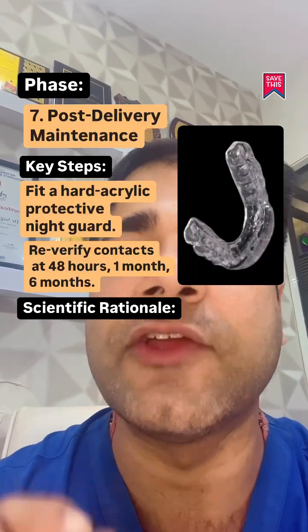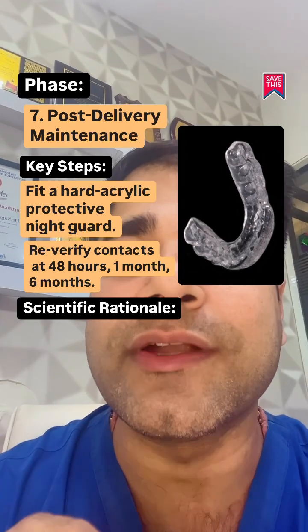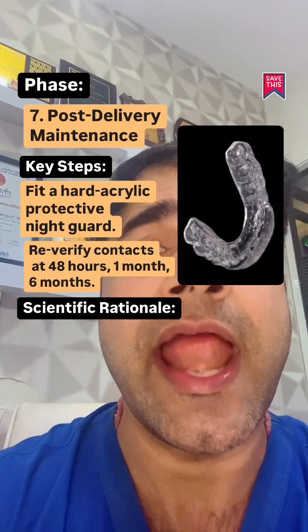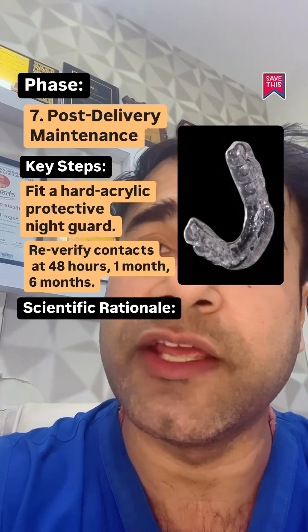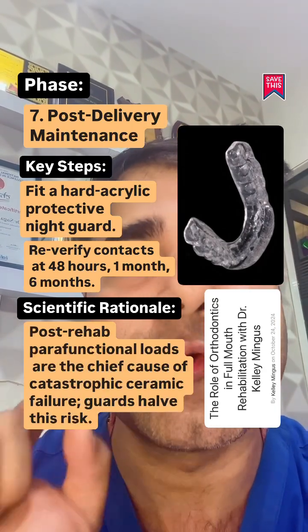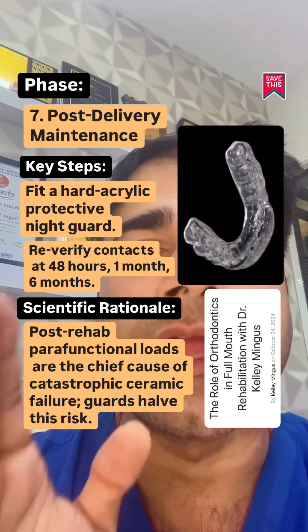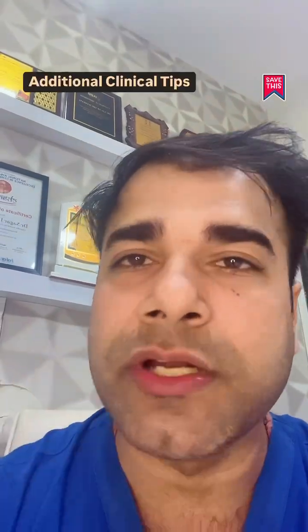Post-delivery maintenance: fit a hard acrylic protective night guard. Re-verify contacts at 48 hours, 1 month, 6 months, and annual T-scan evaluation if possible. Post-rehabilitation parafunctional load is the chief cause of catastrophic ceramic failures — night guards halve this risk.